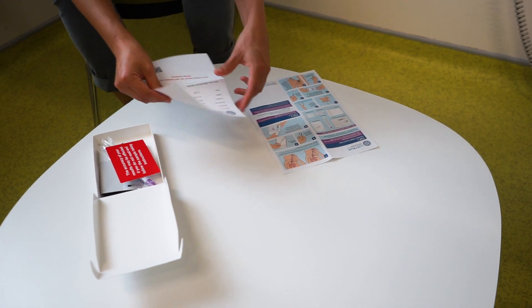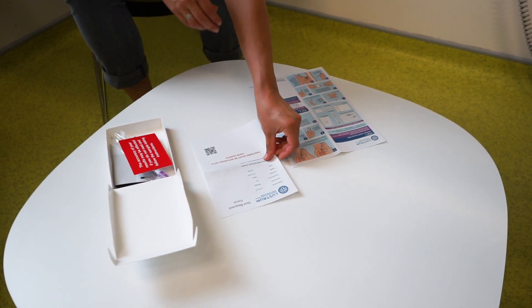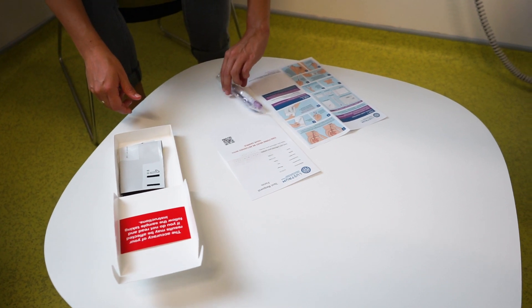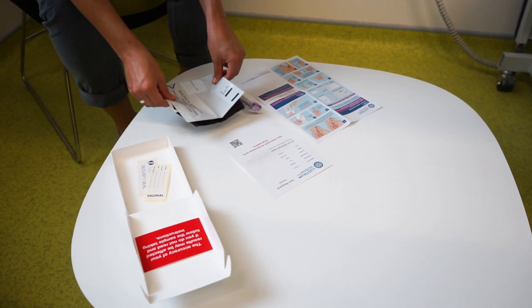In this test kit you should have a test request form, a vulvovaginal swab which is contained within a specimen bottle, and a prepaid mailer envelope.